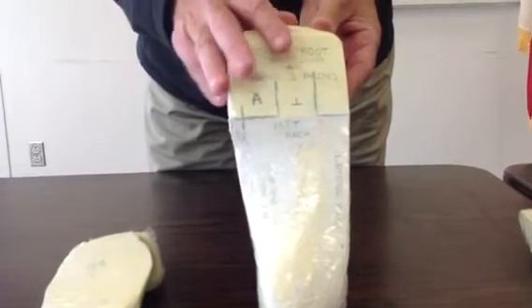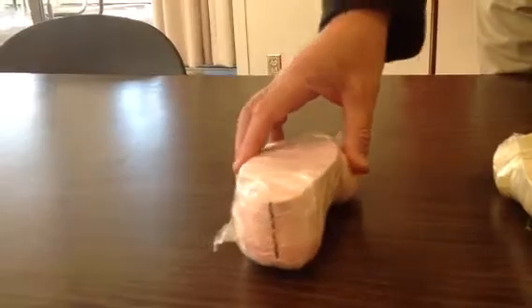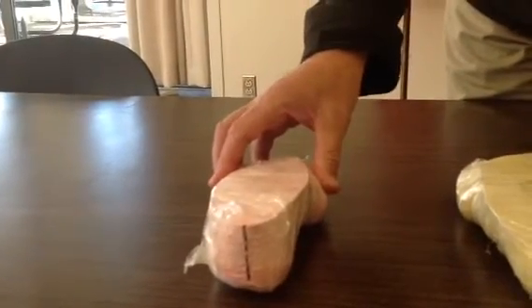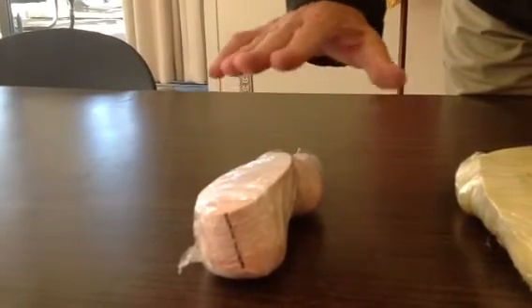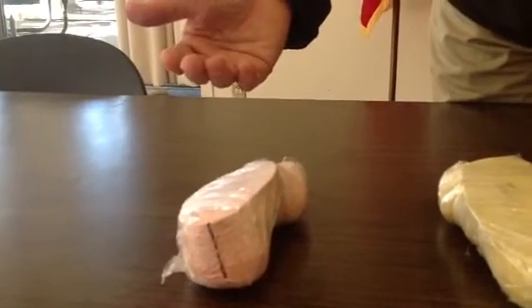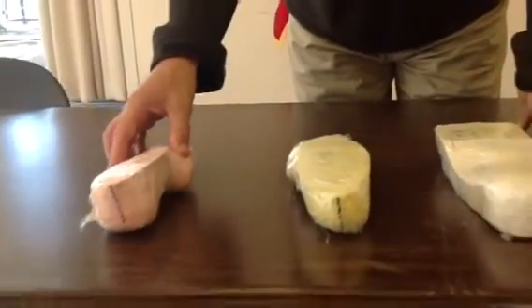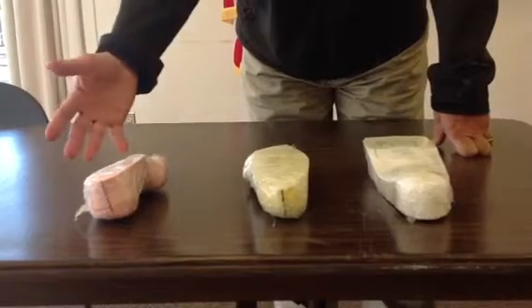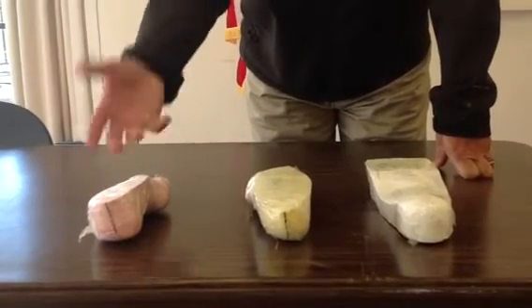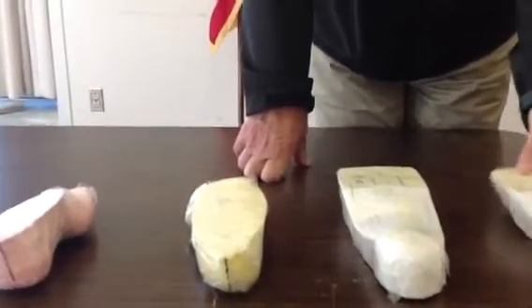The classic Root balance technique is a great cast correction for supinators when they have a high degree of forefoot valgus — what we call an everted forefoot deformity, one that tends to roll out. Forefoot valgus does that, as does a plantar-flexed first ray, and dorsiflexed fourth and fifth metatarsals. You should also know that there are foot types that aren't tilted but have terrible tendencies to supinate because of rearfoot varus, lateral ankle instability, unstable cuboids, and so on.